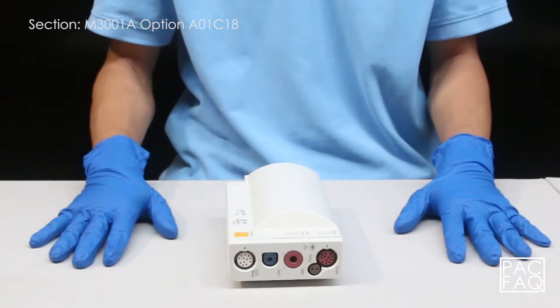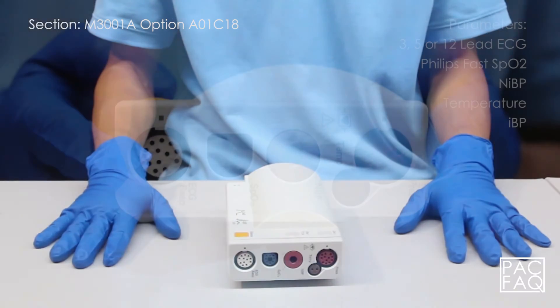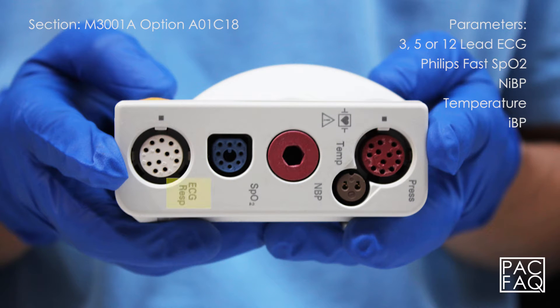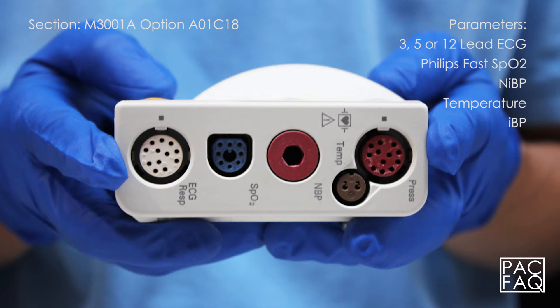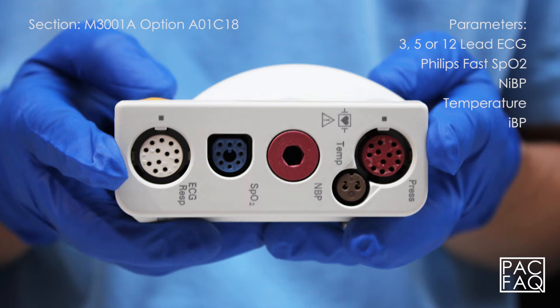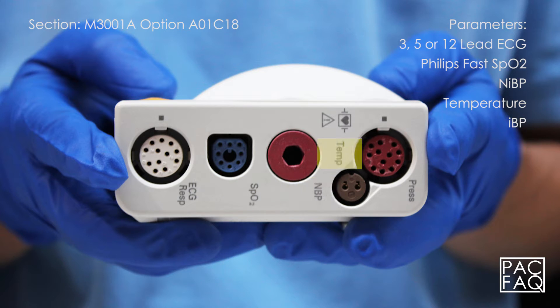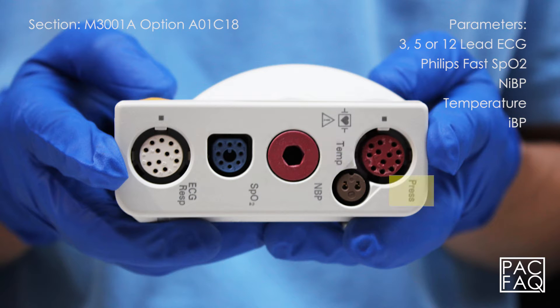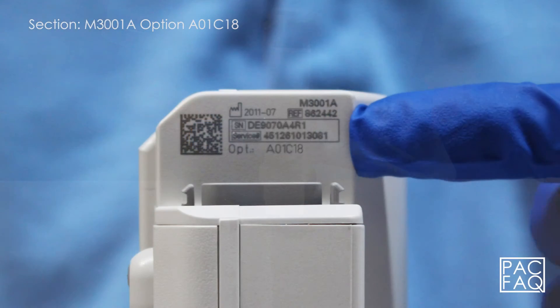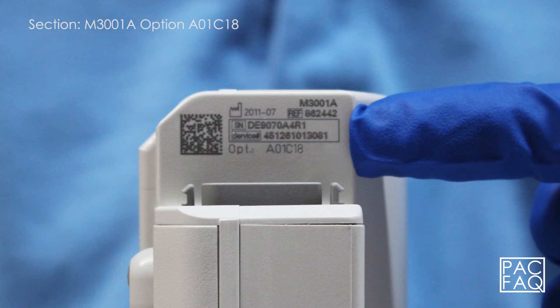Here we have option A01 C18. This unit comes with parameters 3, 5, or 12 lead ECG, Philips fast SPO2, non-invasive blood pressure, temperature, and invasive blood pressure. The product identification and serial numbers are located on the corner back side of the unit.